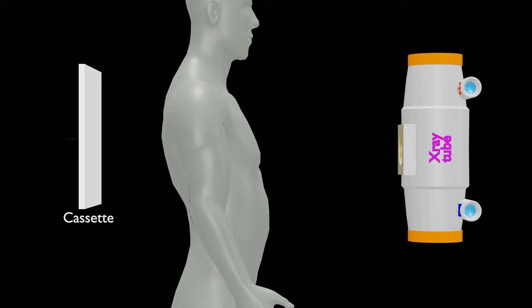A non-uniform x-ray beam if used for imaging can cause artifacts or noise in the radiograph. The difference in human anatomy can be used to manage intensity variation in x-ray beam.